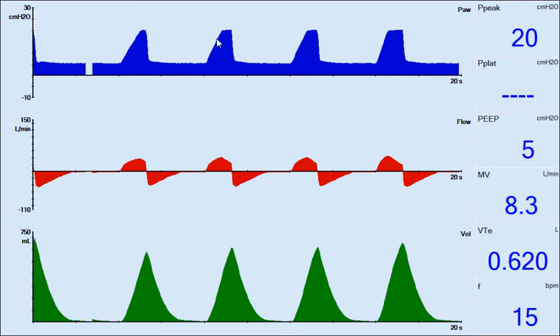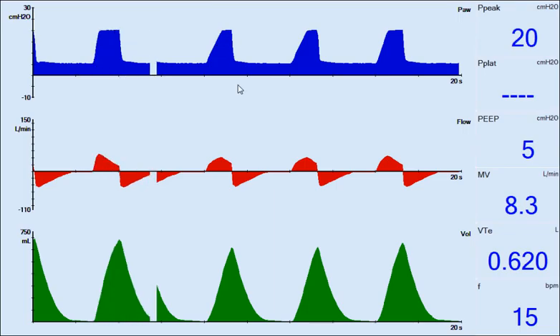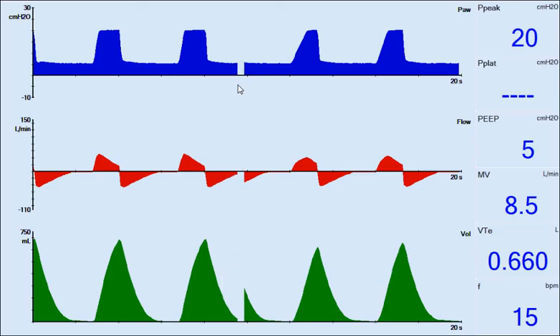As you notice, the waveform will become more ideal for optimal rectangular waveform.